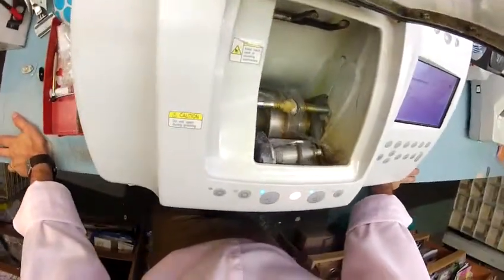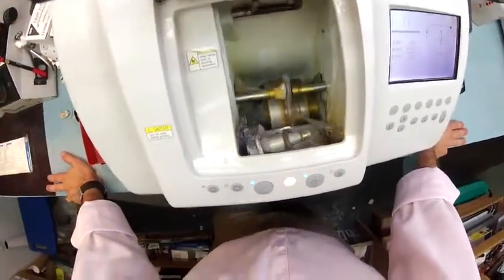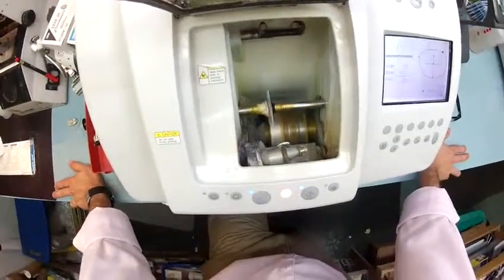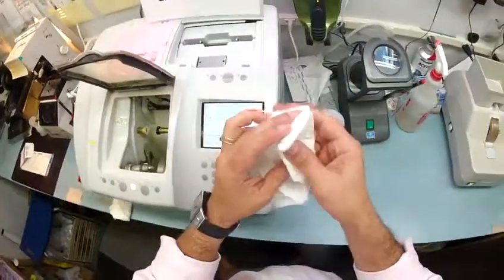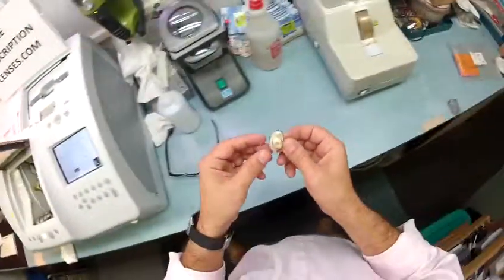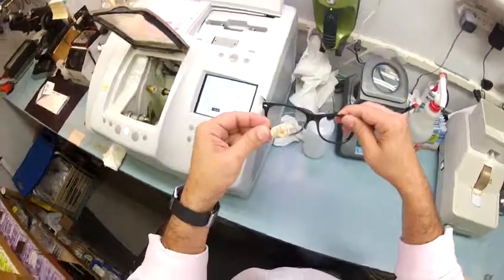It's in the last stage now, getting its little optical bath. This is the only time water actually touches a polycarbonate lens — to clean it off. I have a ton more lenses — all non-prescription Plano fashion lenses, both with and without anti-glare coating. These are the same high-quality ophthalmic lenses used for cataract surgery patients here in Durham. As soon as patients get out of the surgery chair they can no longer see through their old prescription lenses, so surgeons send them to me to cut a clear lens — so they can see 20/20, and to act as an ophthalmic band-aid protecting the eye within 48 hours after surgery.